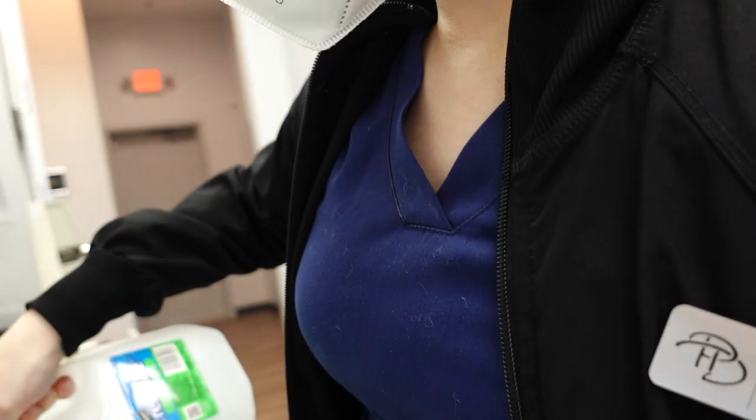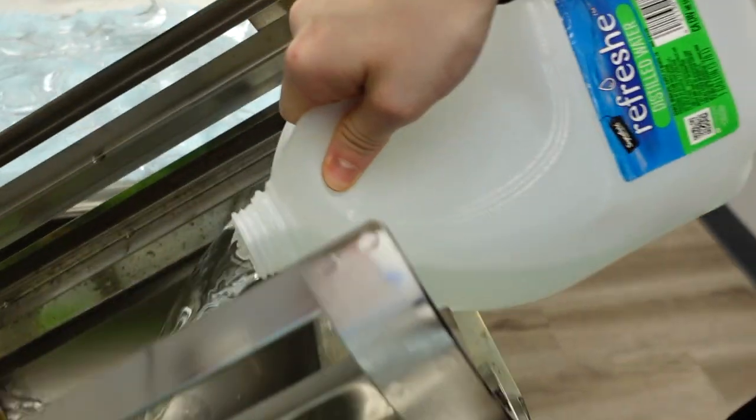Don't do what I just did. So I think this video was pretty straightforward. You do all those steps and the main things you're going to repeat three times total — you may have to do more if you haven't cleaned your autoclave in a while and the water is coming out a funky nasty color. You'll run the autoclave cycle, dump out the water between cycles, and replace it with new fresh water. And of course it has to be distilled, so keep that in mind. Don't go mess up your autoclave.